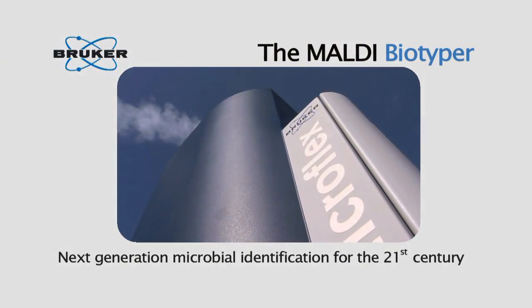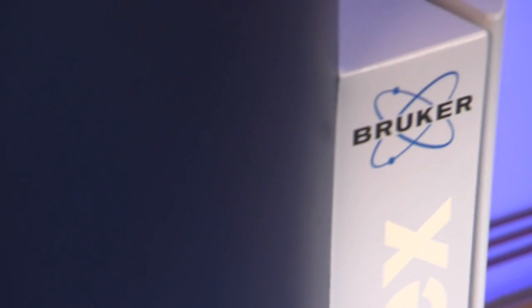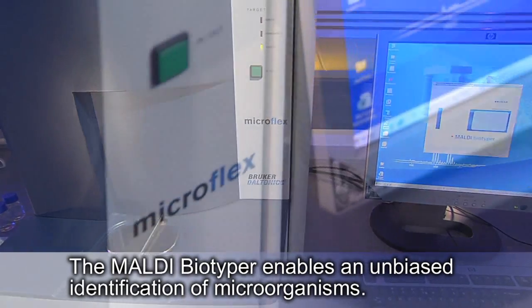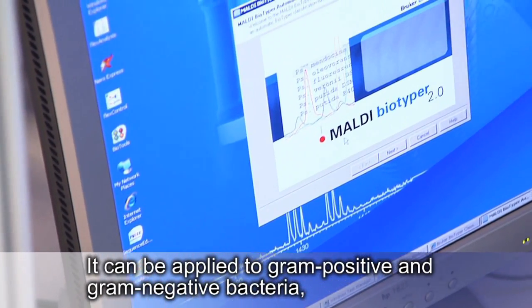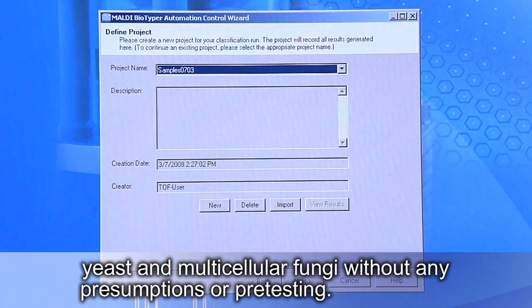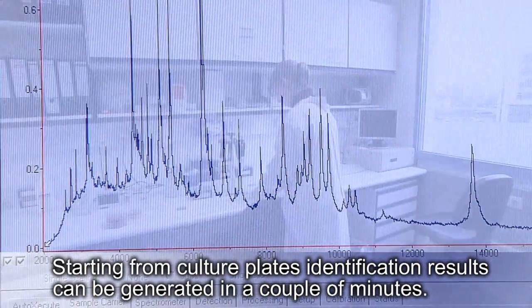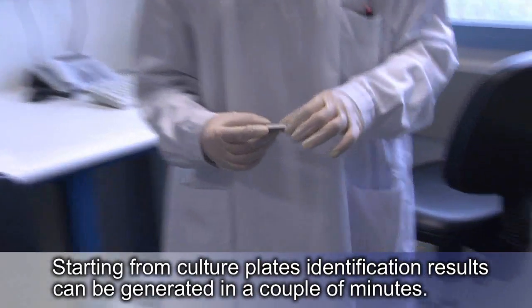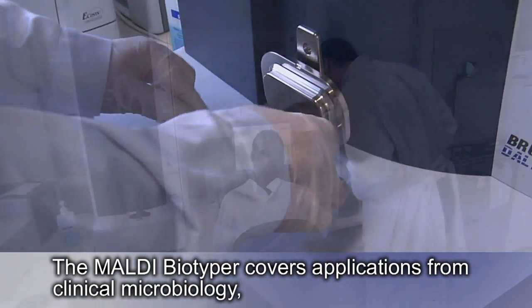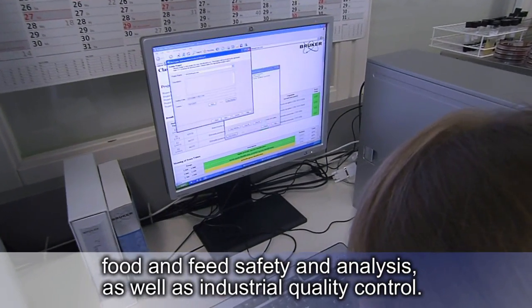Maldi Biotyper, the next generation microbial identification system for the 21st century. The Maldi Biotyper enables an unbiased identification of microorganisms. It can be applied to gram-positive and gram-negative bacteria, yeast, and multicellular fungi without any presumptions or pre-testing. Starting from culture plates, identification results can be generated in a couple of minutes. The Maldi Biotyper covers applications from clinical microbiology, food and feed safety and analysis, as well as industrial quality control.